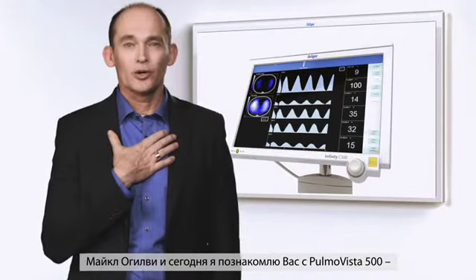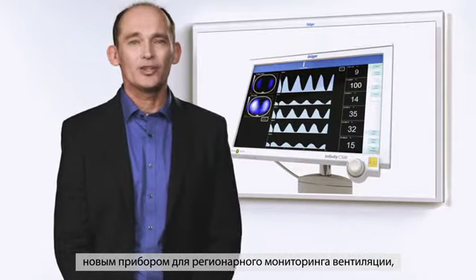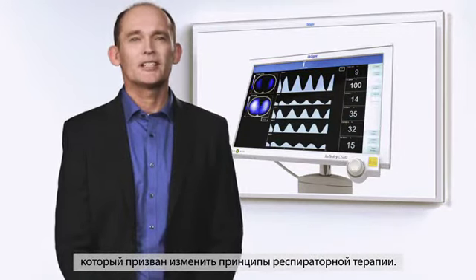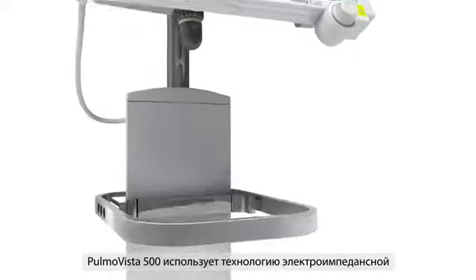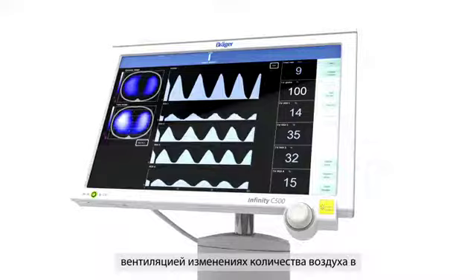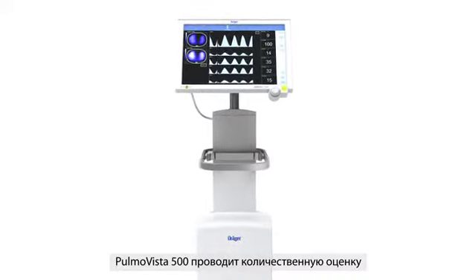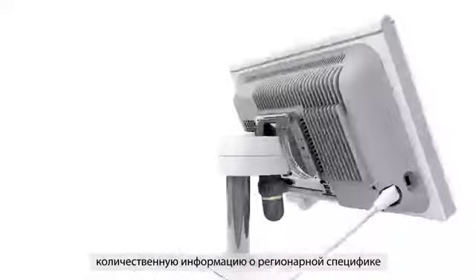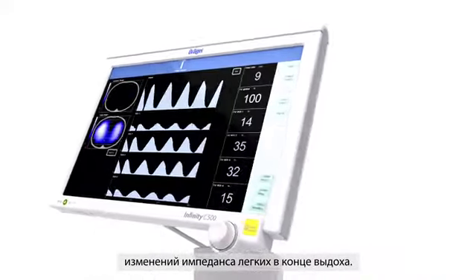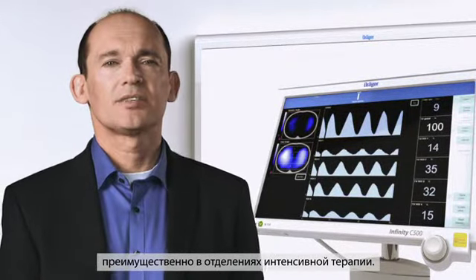My name is Michael Ogilvie, and today I will introduce you to the PulmoVista 500, a brand new regional ventilation monitor set to change respiratory care. PulmoVista 500 uses the technique of electrical impedance tomography to display information about ventilation-related changes of air content in a cross-section of the chest. PulmoVista 500 quantifies the distribution of ventilation, as well as providing quantification of regionally specific changes in end expiratory lung impedance. It is intended for bedside use, particularly in the intensive care unit.